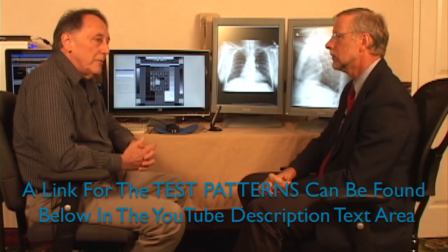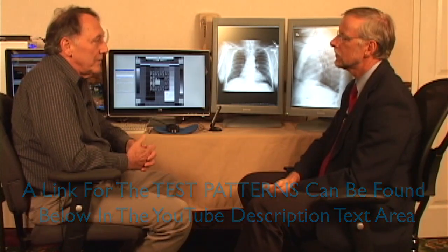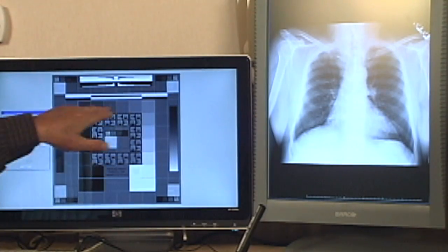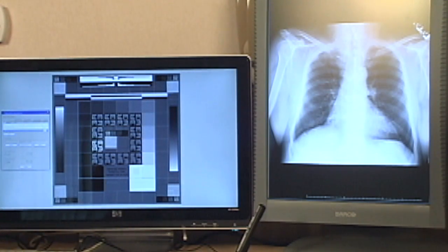And these test patterns, they're publicly available. You can download them from the internet, right? That's correct. The original chairman of AAPM TG18 was at Duke University, and the Duke University website is where you can download all the test patterns and the document itself that explains everything. Okay, so in the document, even if we forget a little bit about all the characteristics, we can even find how to interpret it. There are appendixes within the original document that describe every nuance of this test pattern: how many pixels form a small square there, and plus or minus how many digital driving levels.